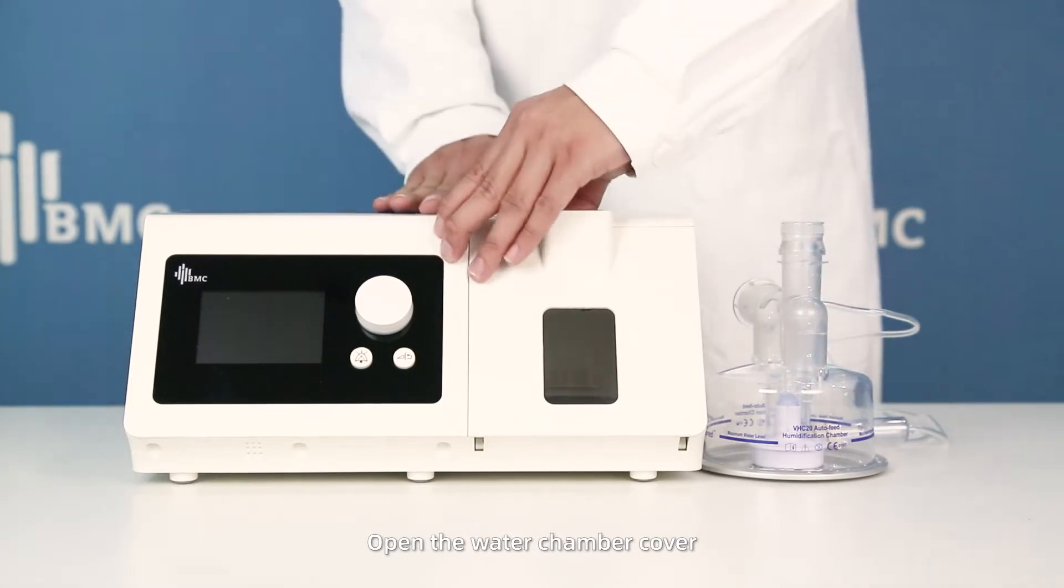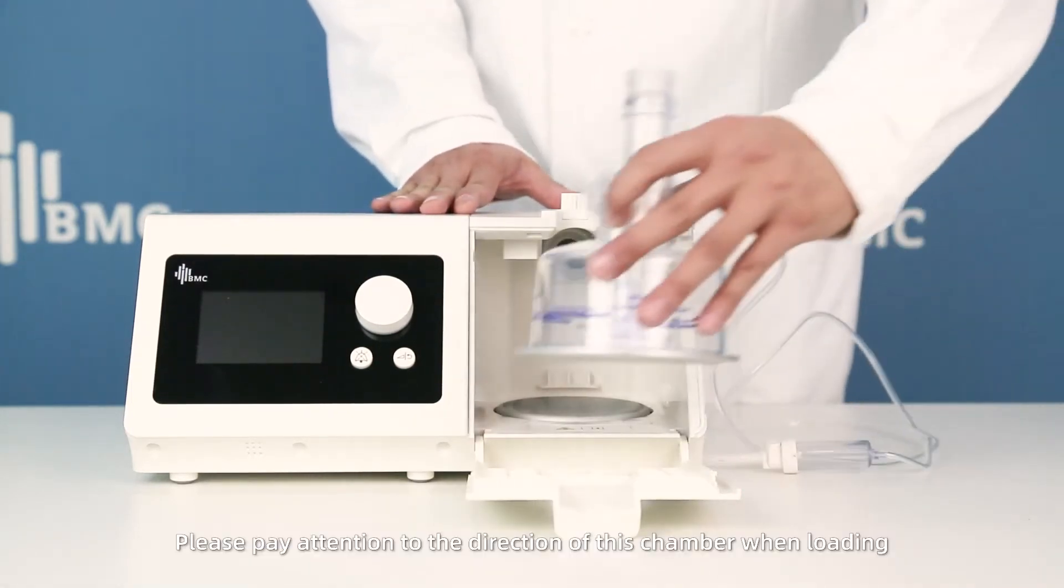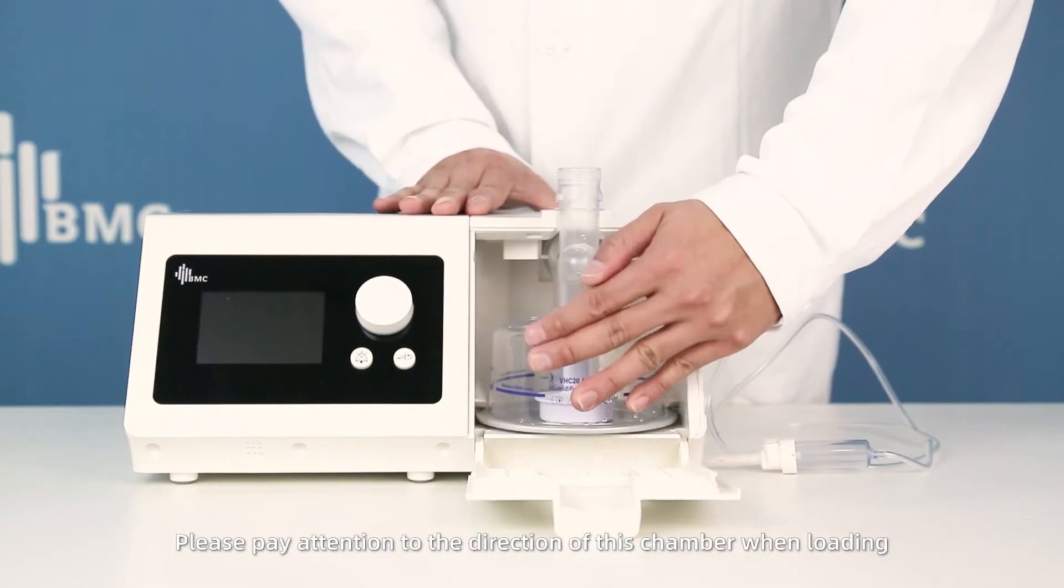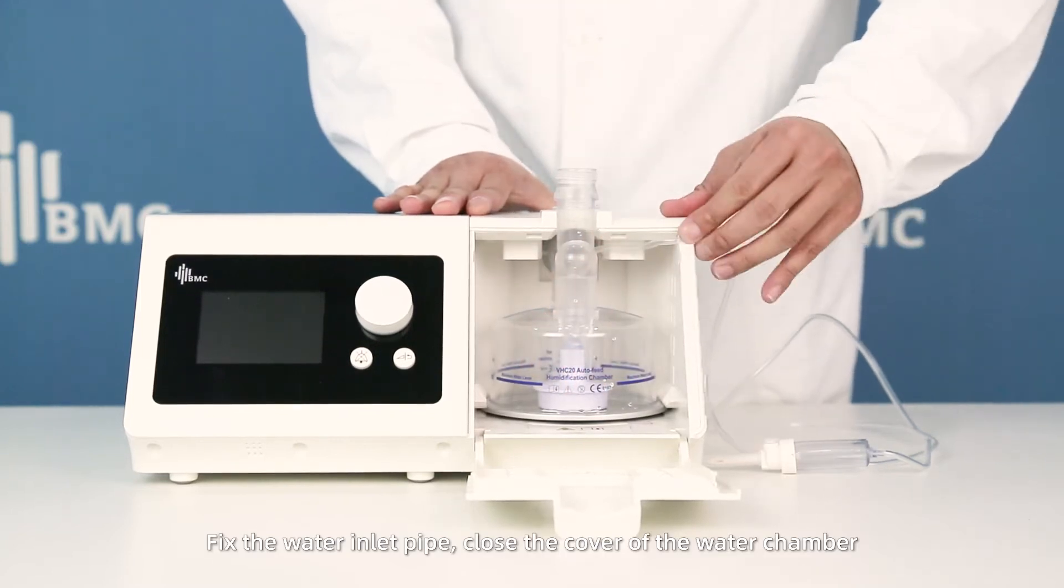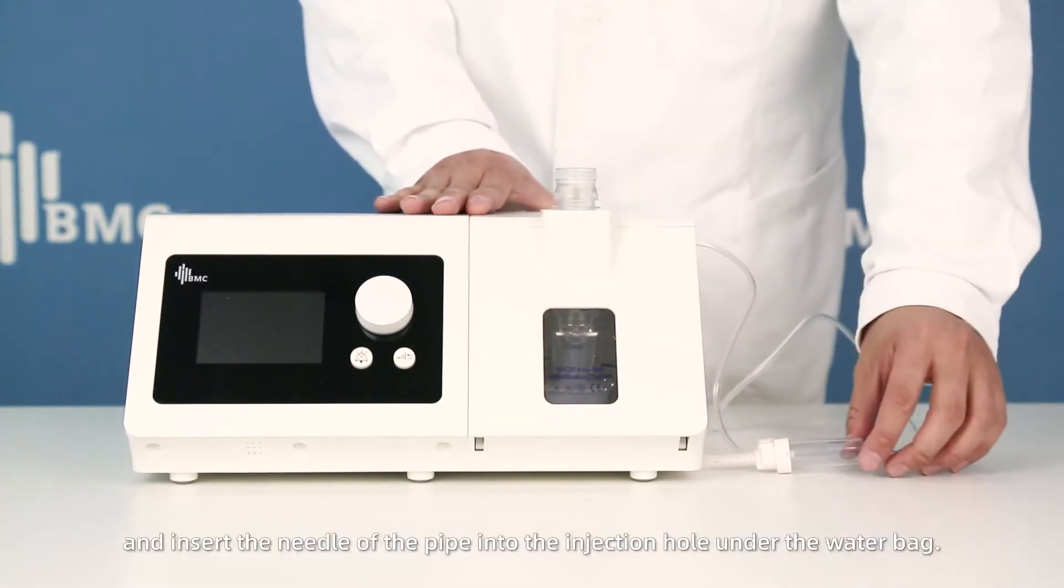Press down and load the water chamber. Pay attention to the direction of the chamber when loading. A click indicates it's finished loading. Fix the water inlet pipe, clip the cover of the water chamber.